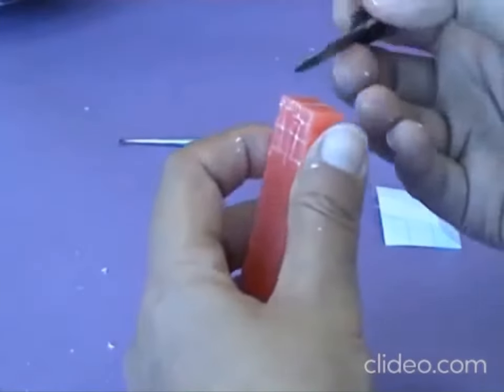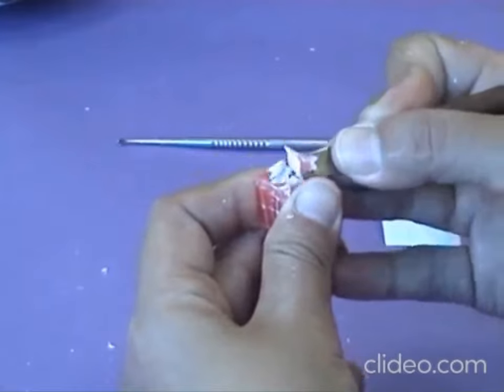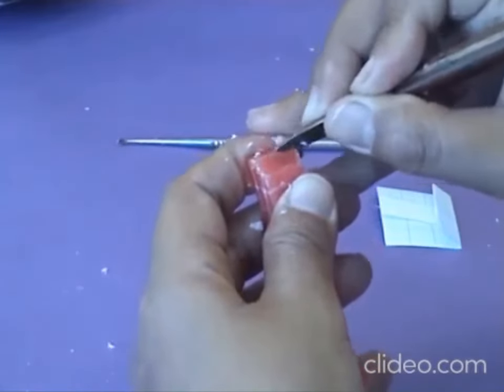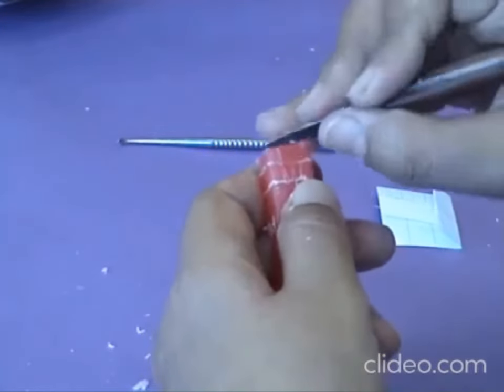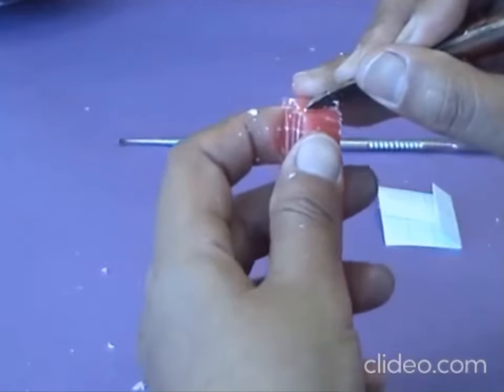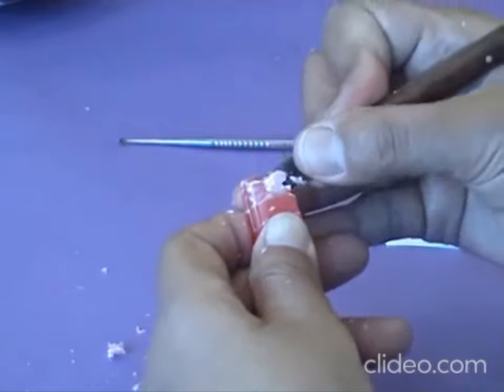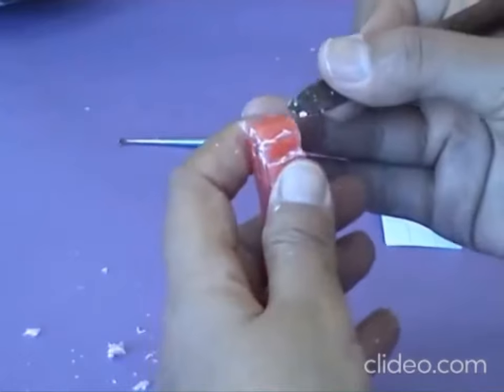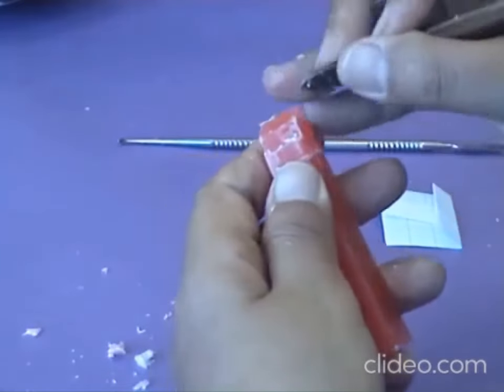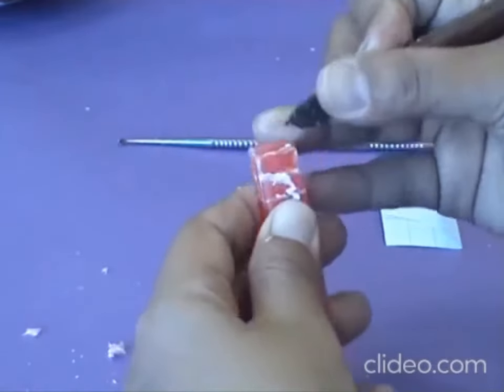Draw the root portion coming straight downwards. The cutting method is the same as in the canine — support cutting with the knife layer by layer, then remove the excess until you reach your outline. We cut into three planes: the first plane from the top of the block to the level of the cusp slope, keeping each plane smooth without excess wax. Then redraw the cusp slope line as reference for the second cutting plane, from the cusp slope to the cervical line, cutting inwards from the wider dimension to the narrower dimension. Adjust all planes to be smooth without irregularities.